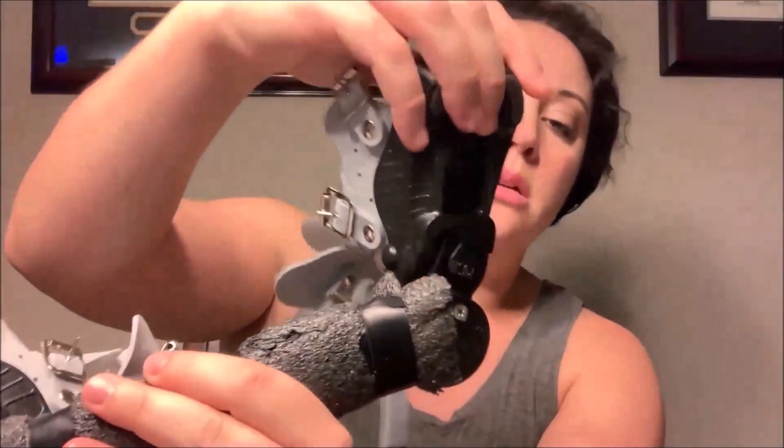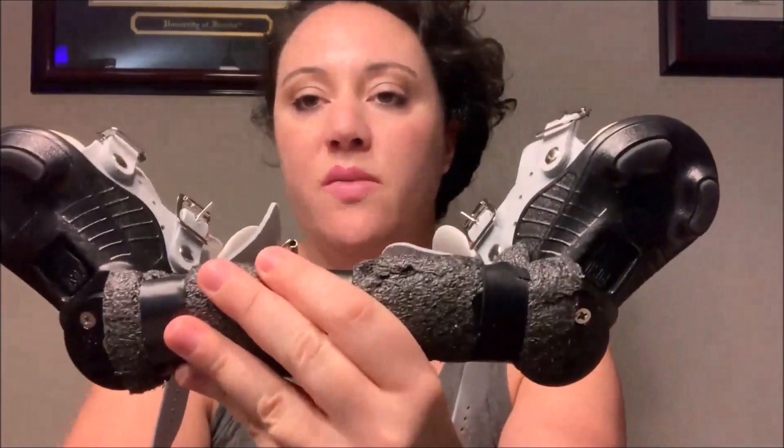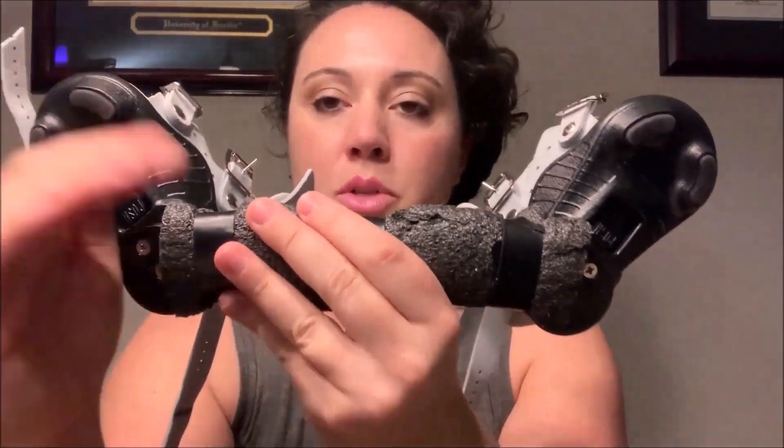There's a piece that slides onto the boot — the bar snaps on, and there's a push button to take it off. Both boots sit in this outward position to help keep his feet from turning back in, because club feet are very much turned inward. I'll show you some pictures at the end of the video of where his feet were at their most severe stage — completely folded over one another. This just keeps his feet in that corrected outward position while he wears it at night.